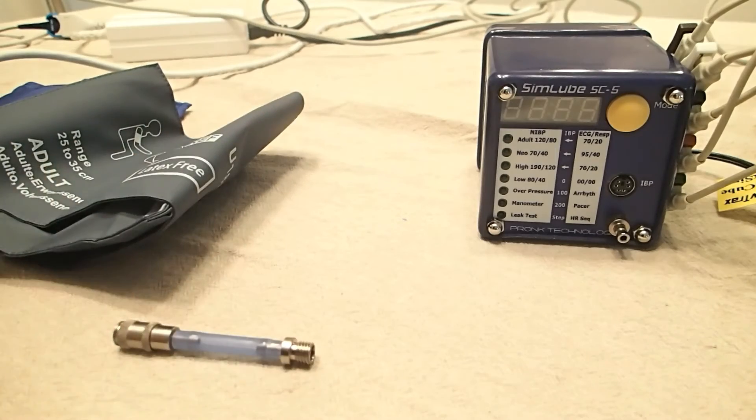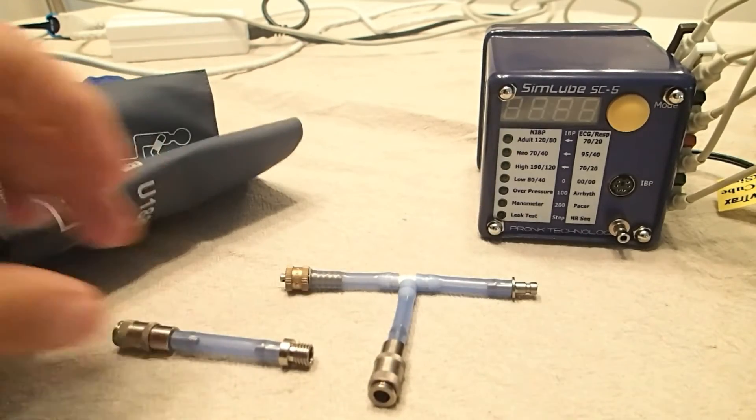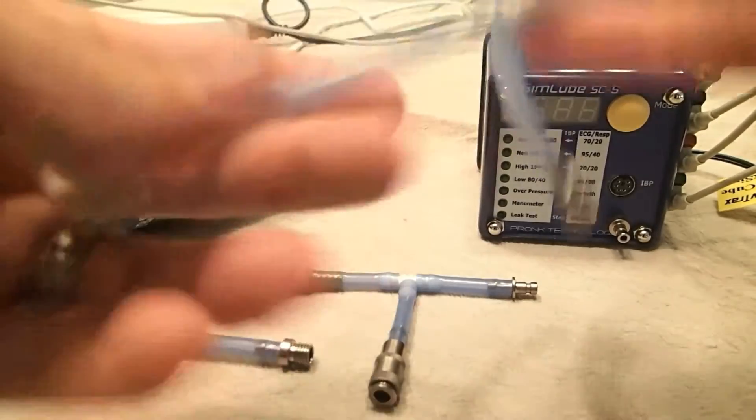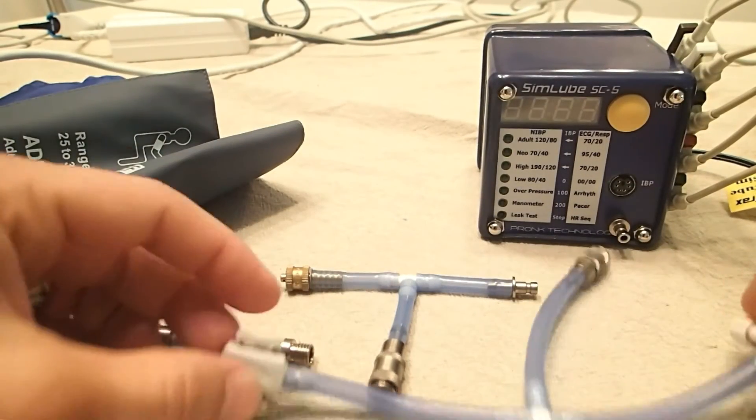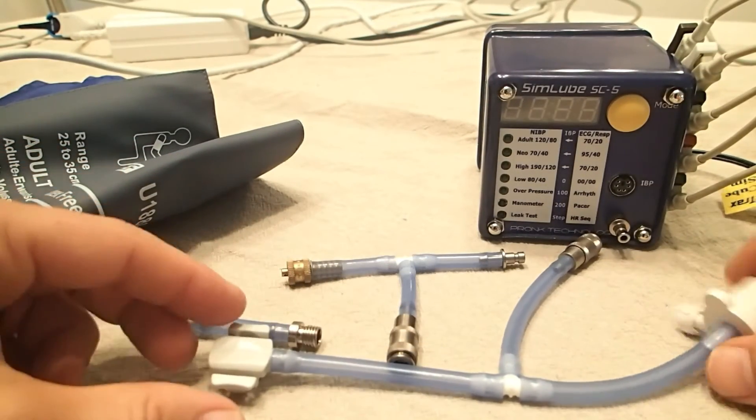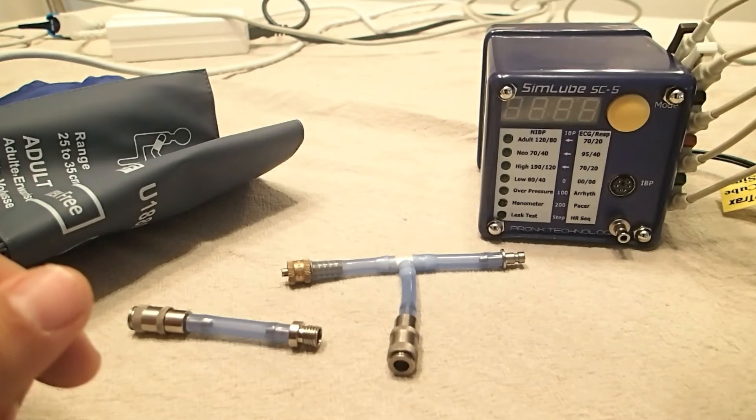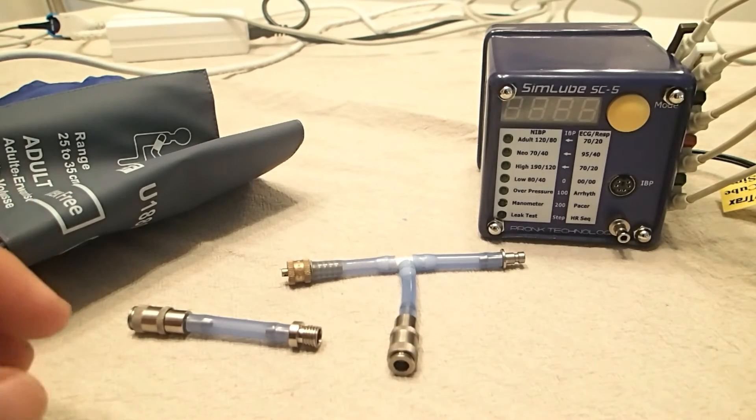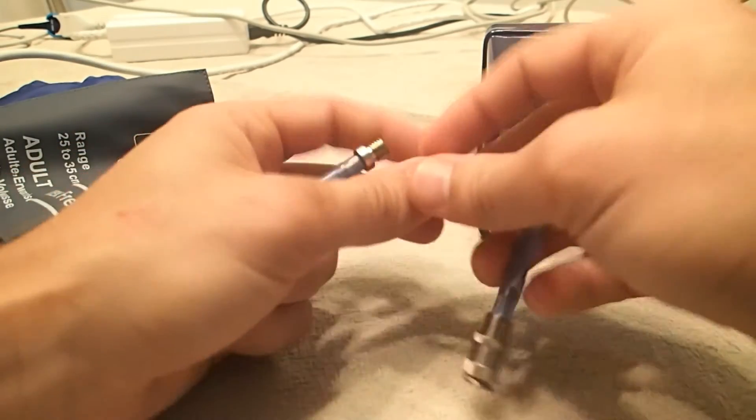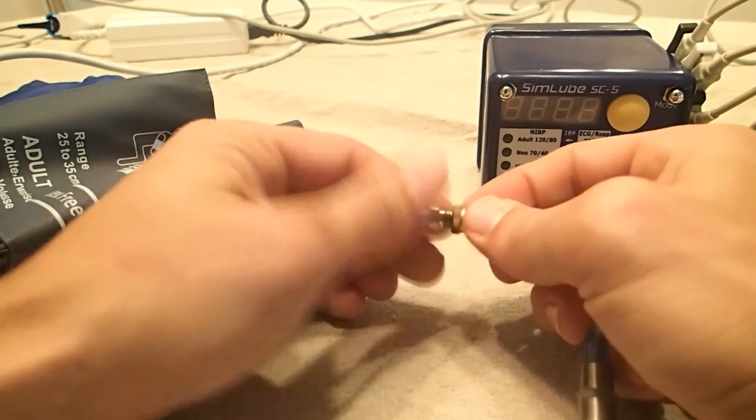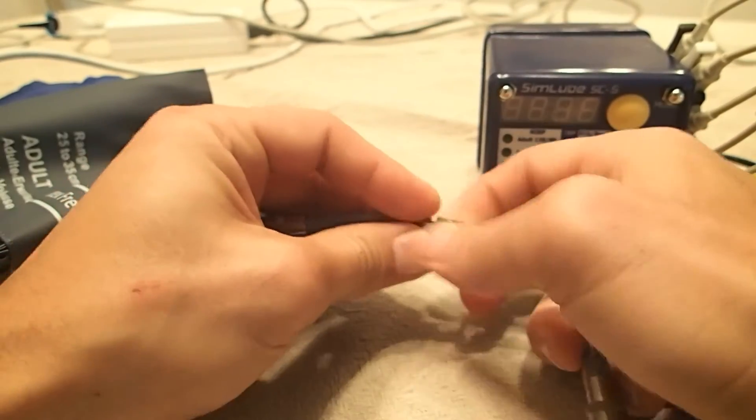One of the things you have to realize is there's a lot of different connectors that are available in the kit. This is not all of them, but these are some of them. You have to make sure you know what connector's needed for your particular device. So for our SpaceLabs device, we need to set this connector up.